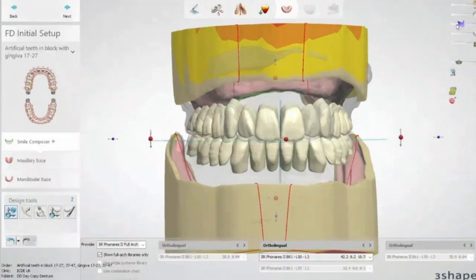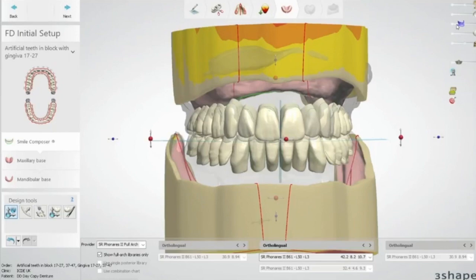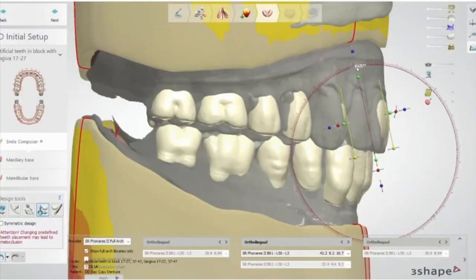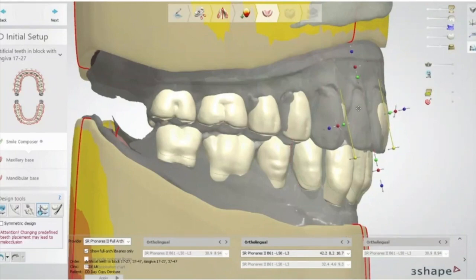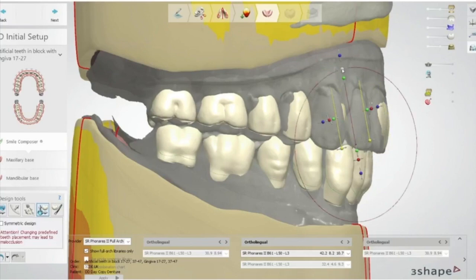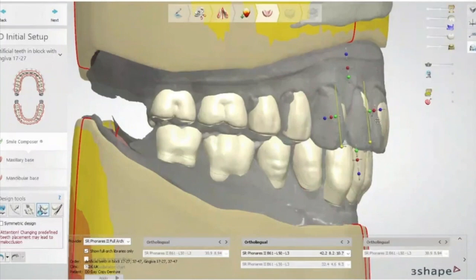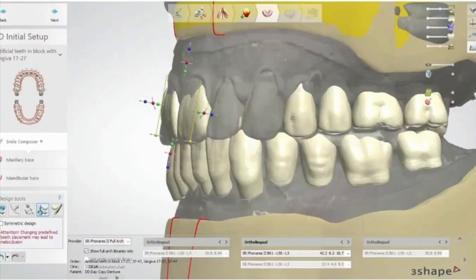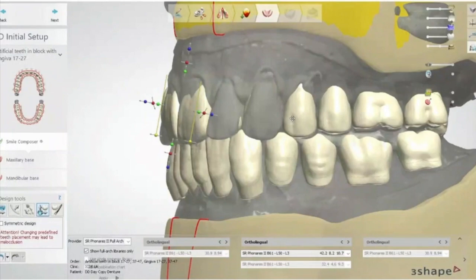Once posteriors are in rough position I start adjusting. You can select a tooth individually: bring the neck out, bring the tip out, twist it, modify shape or size. With a conventional setup you're governed by the size of the teeth from the card, but with this I'm going to mill this arch — so I can do whatever I want and it'll mill out exactly that design.